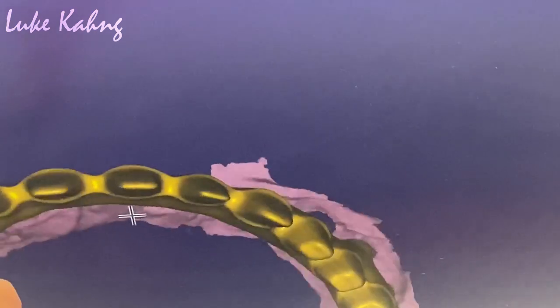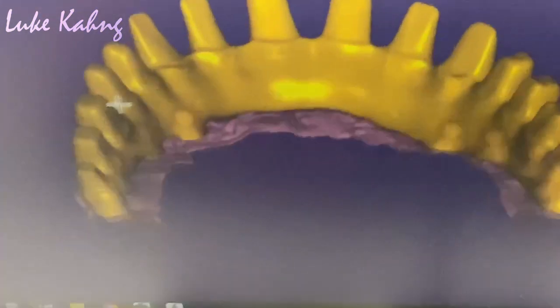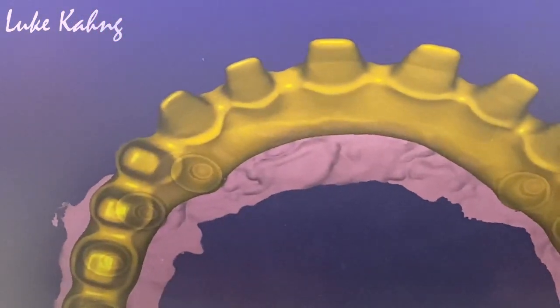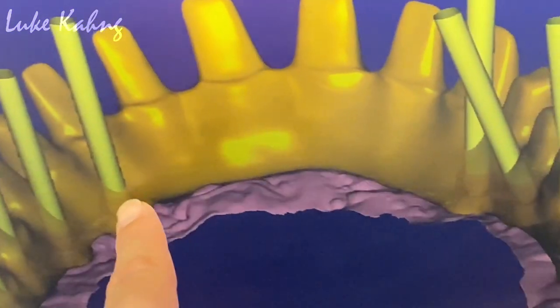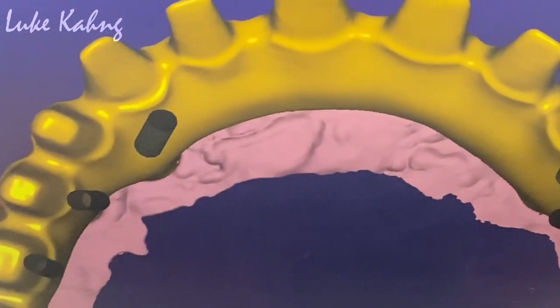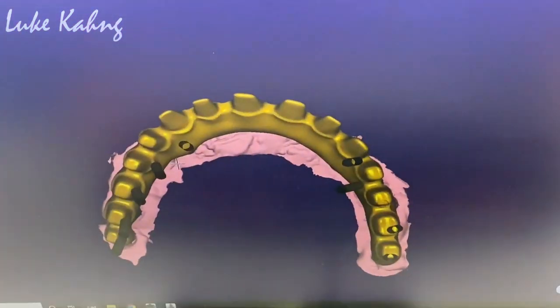Let me see the tie base here. There — that one will be covered. Yeah, I don't mind — just a little bit added, not a problem. It's really thin, just a little bit added. It's good — anyway, we can build it.